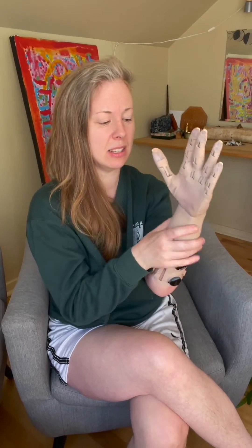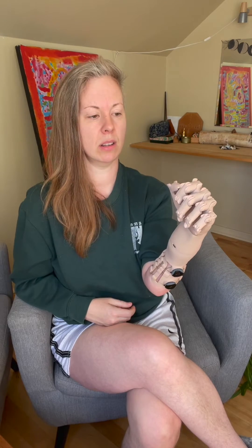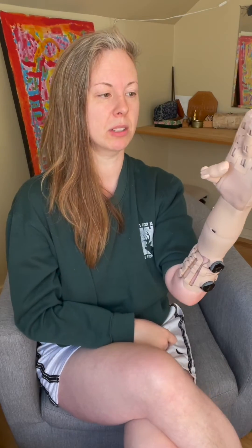I call it the grocery bag grip — just the four fingers curl under. This is really good if you're carrying something with a handle. Let's go to the last color, which is a nice dark blue. With the thumb out and a tiny pulse, I'm holding maybe a credit card. And now with the thumb in, here's what this grip looks like — you can really hold on to something nice and tight in that little hole there. I think that's all of the grips.